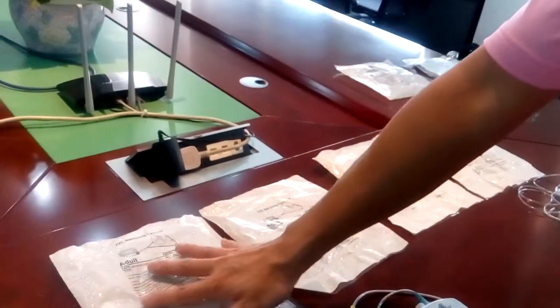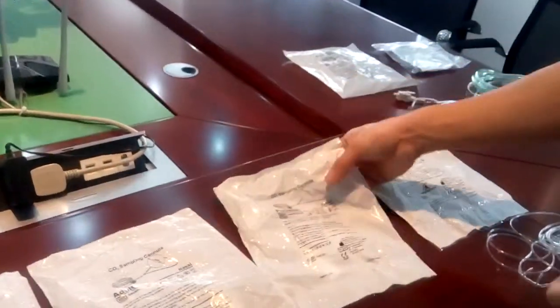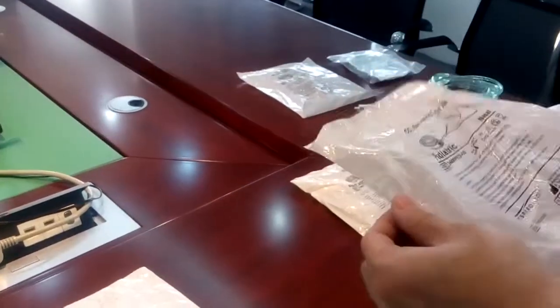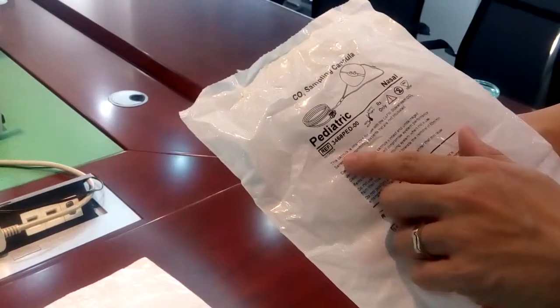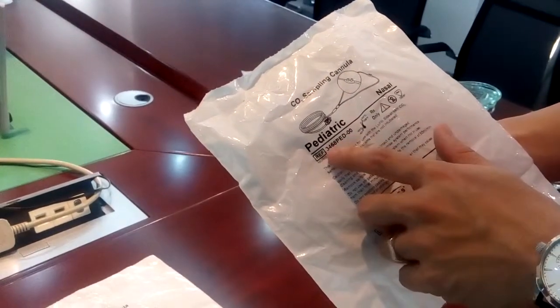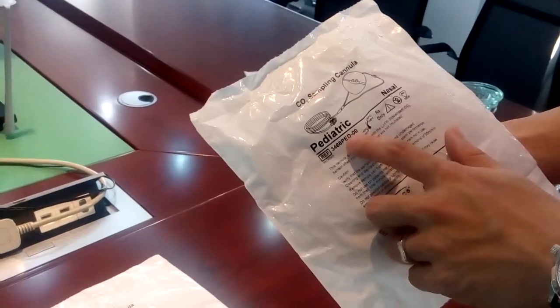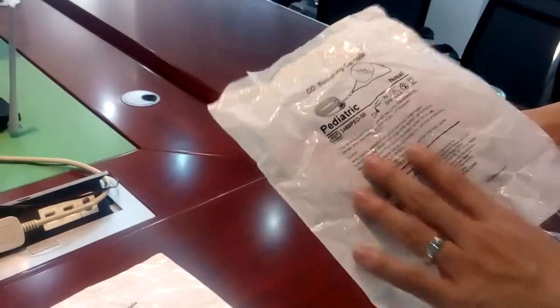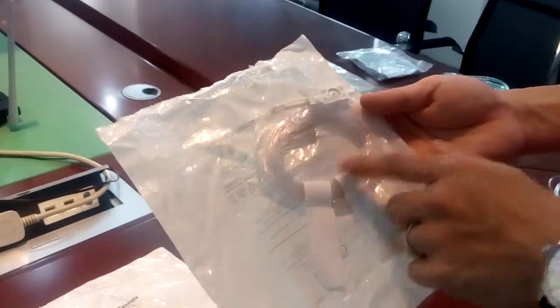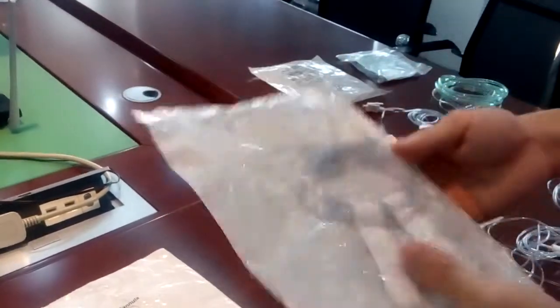What about smaller patients? We also have a solution for pediatric and neonatal. The part number is very similar — 3468 PED for pediatric. Only the size of the tubing is different.